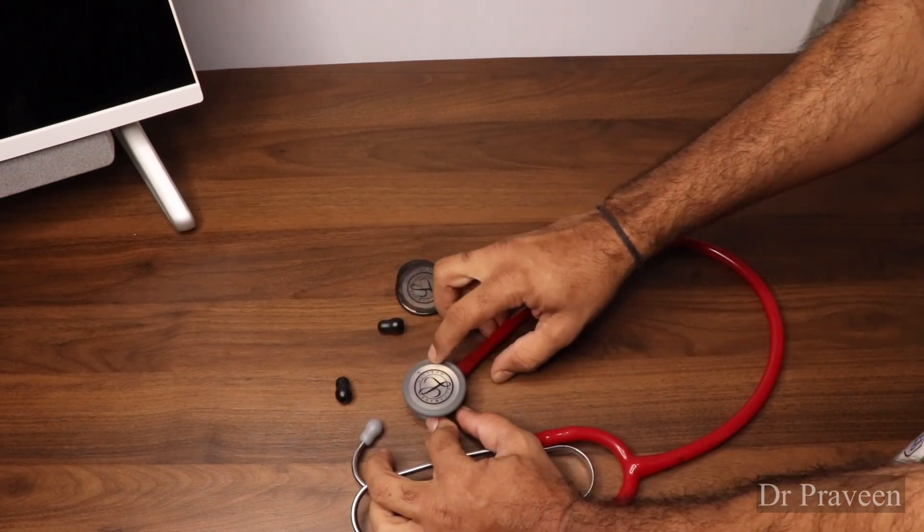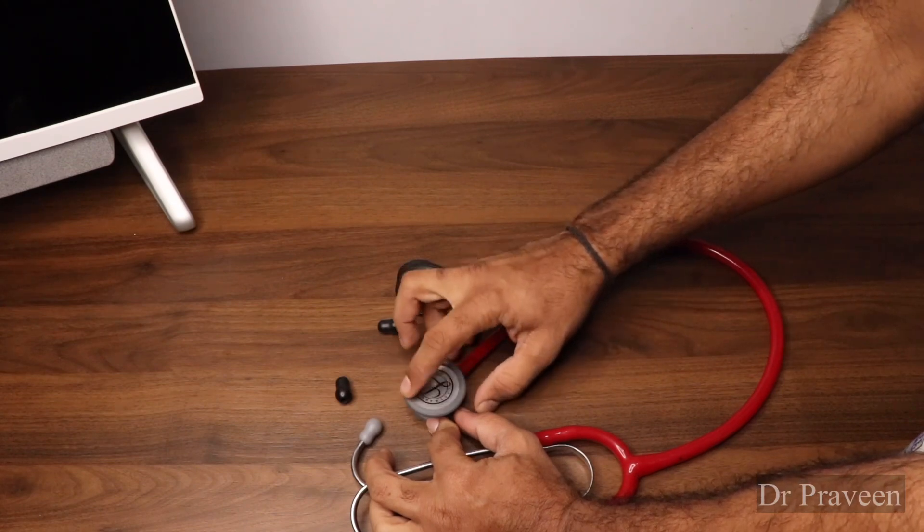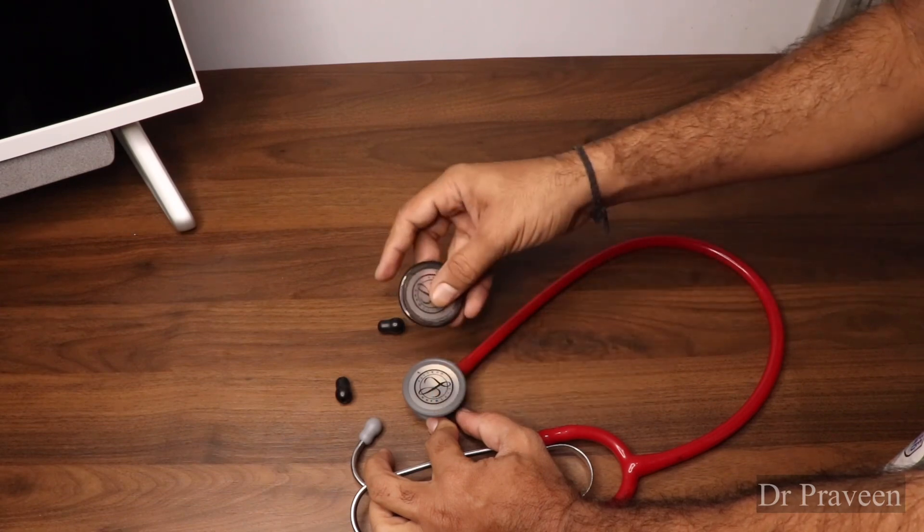This is a very sensitive part for the heat and all, very thin part. That's why over a period of time, we lose the diaphragm at this area.